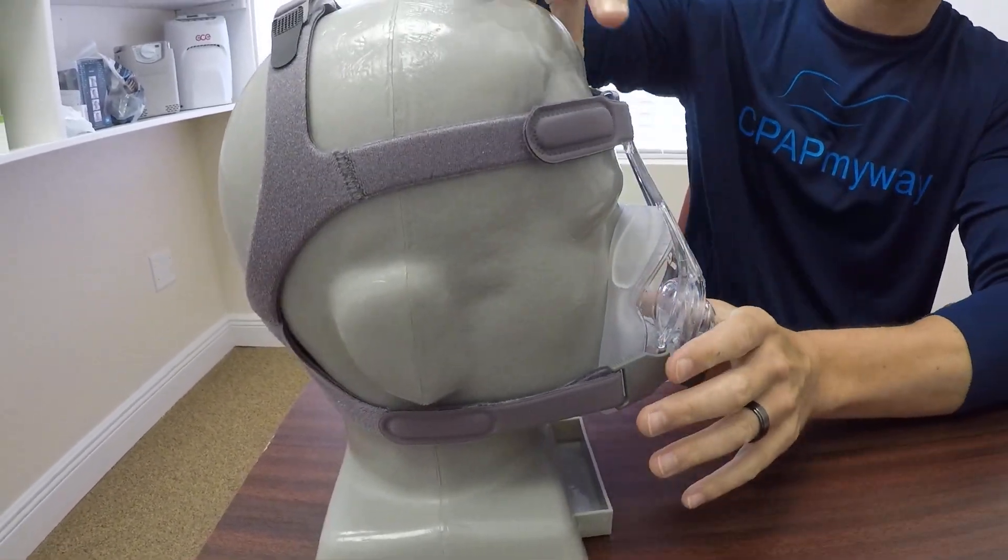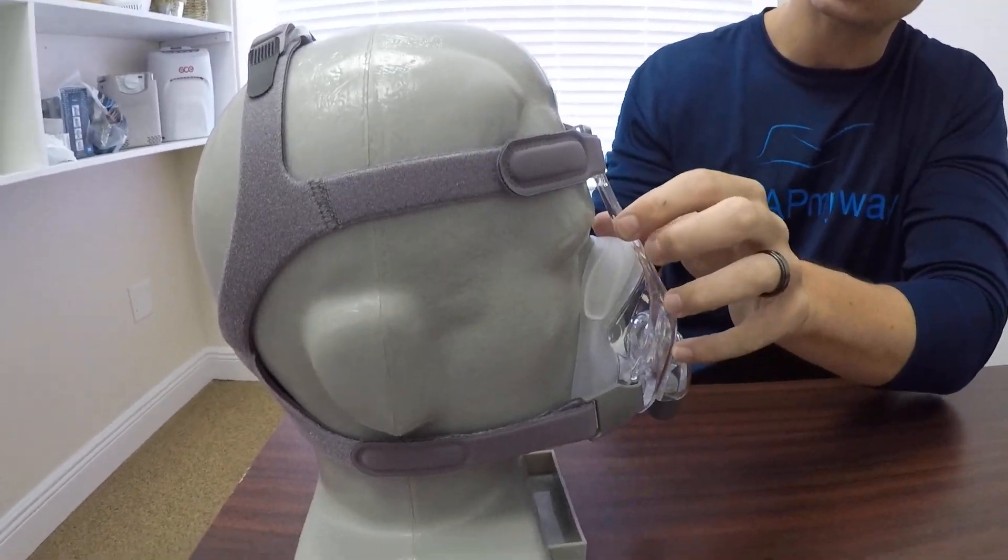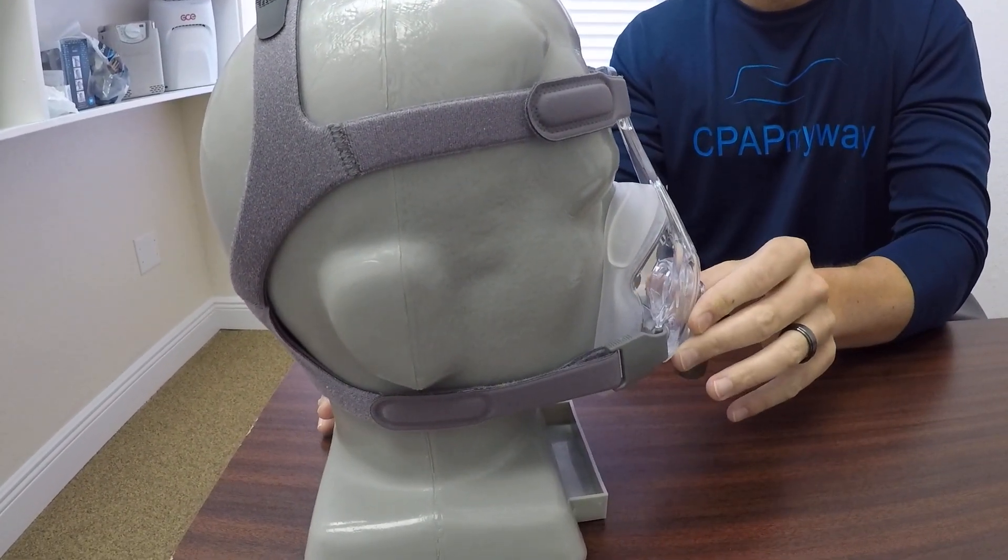Additionally, it has a four-point headgear, which is nice. You can actually tighten and loosen accordingly on the top and bottom.